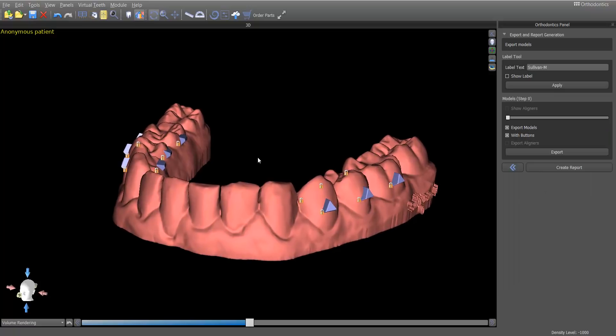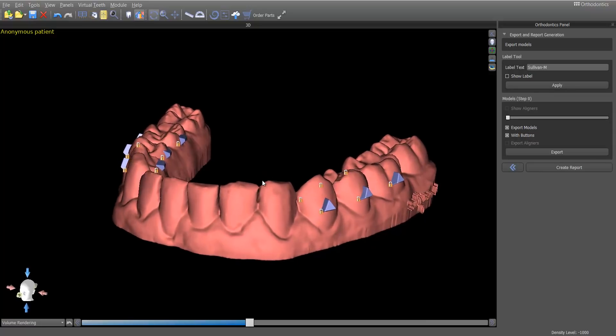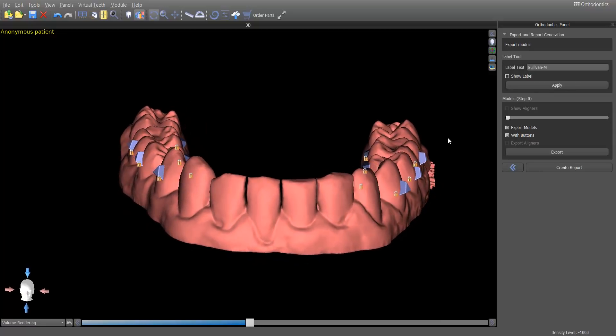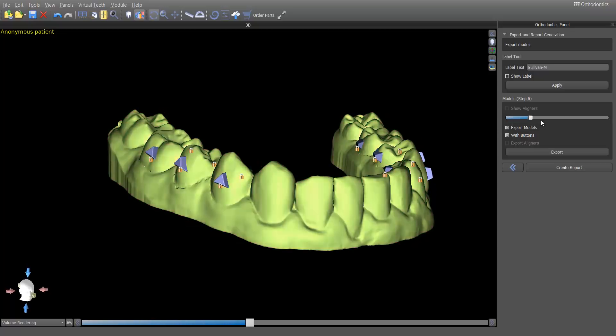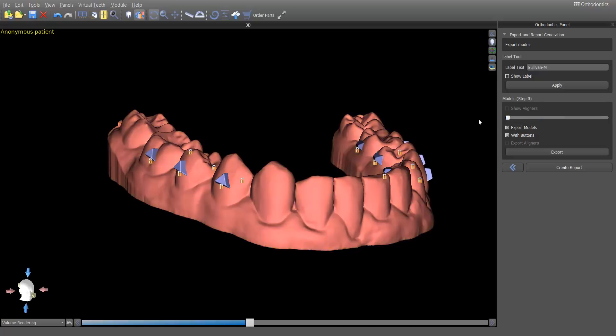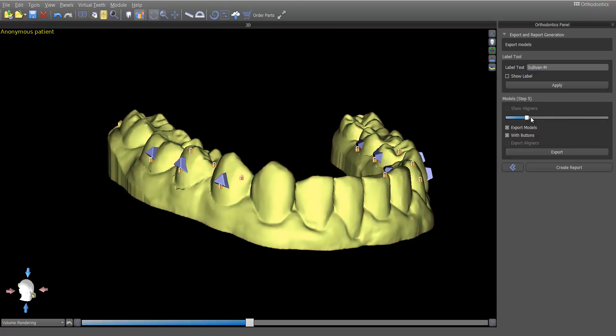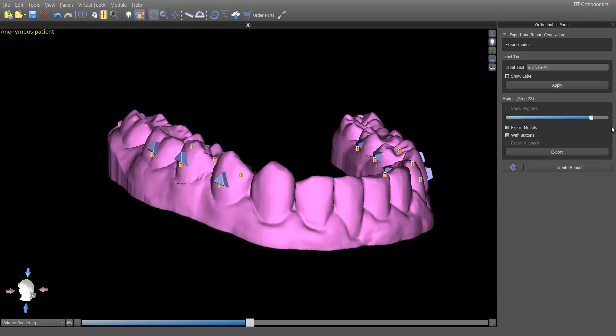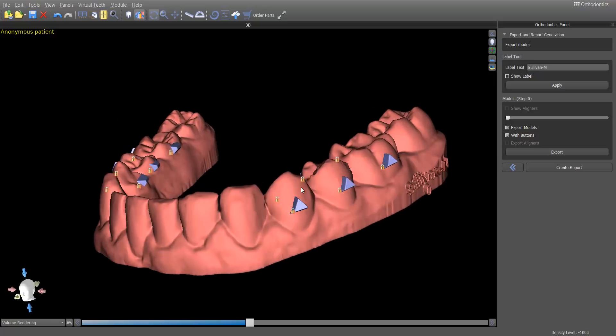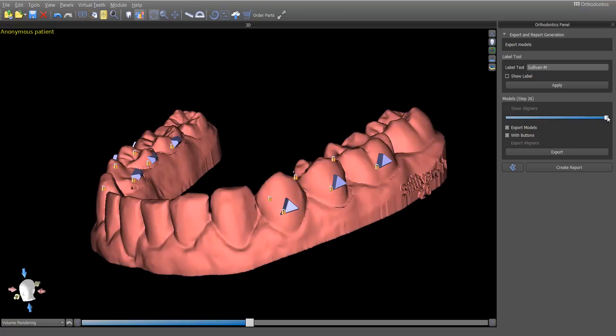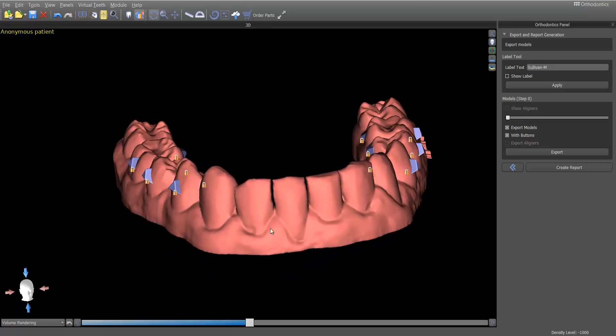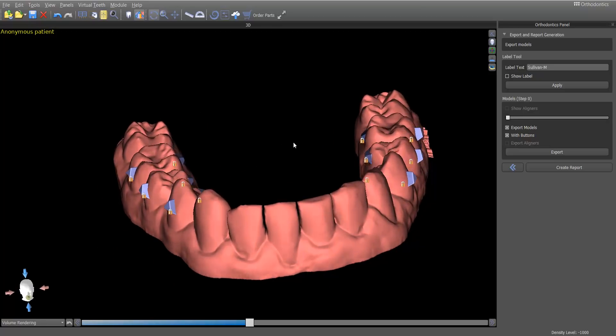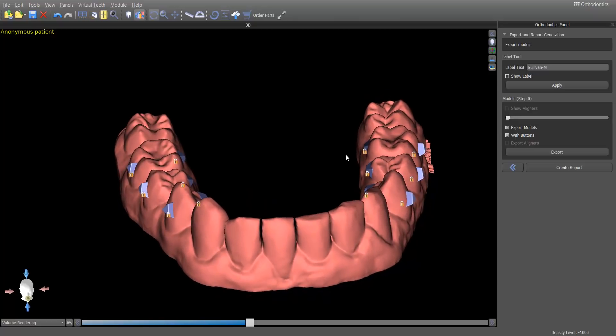So, when this video picks up, I'm going to show you how I now make this print-ready, even though I don't have a big platform or perfectly flattened-off heels. Okay. So, at this point, we have completed the actual orthodontic plan for this case, and there's quite a few models in this because we are extruding posterior teeth. That just takes a while. It takes some patience. We could cut down the models if we wanted and do faster, larger movements, but I'm okay using a little extra resin, a few more trays and a little more time to make sure we get good results. But, anyway, the point is, here's our models. We're ready to export these and get these printing. And so, this is where the beauty of the simplicity comes in with the very minimal mesh mixer work.